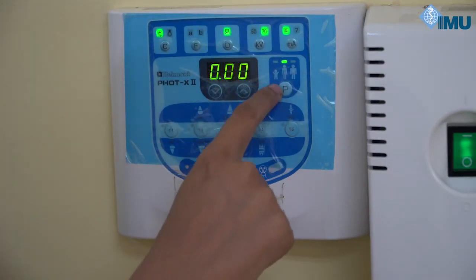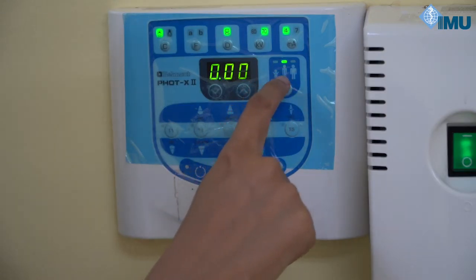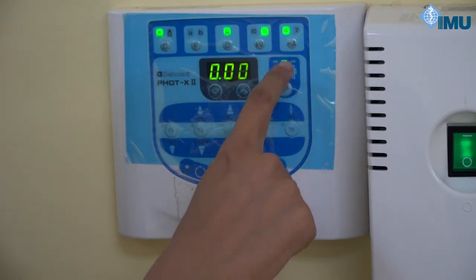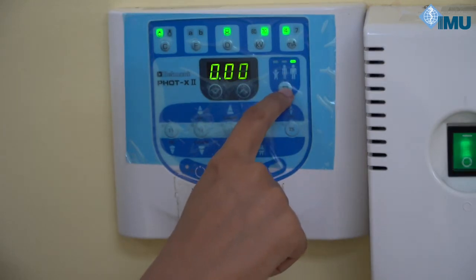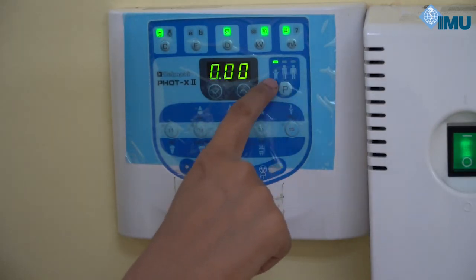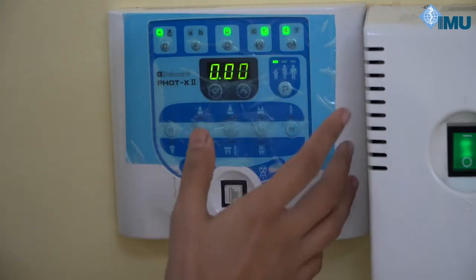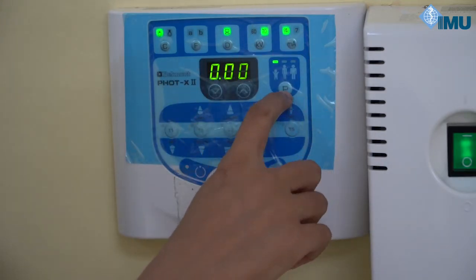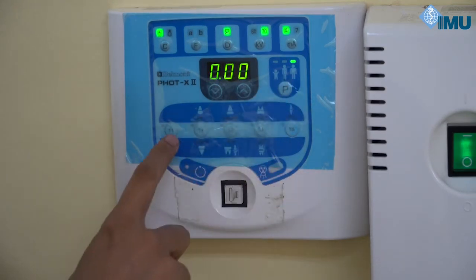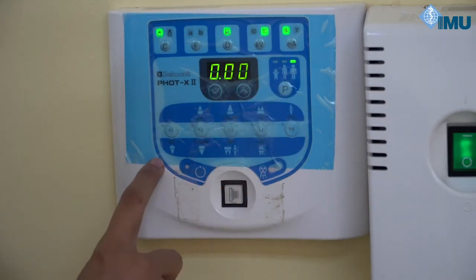For patient selection, you have three options: child patient, middle-age or lean patient, and obese patient. You can select the patient size depending on the patient's age and body density. We will select the adult patient here.